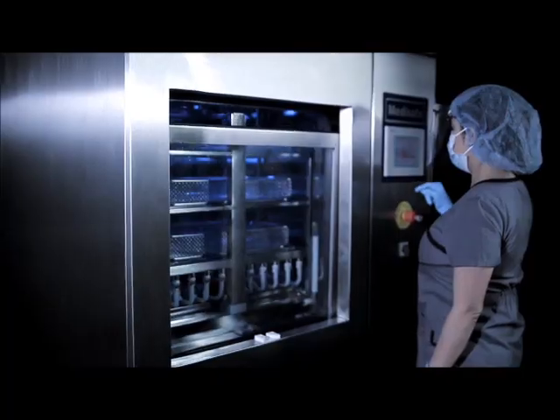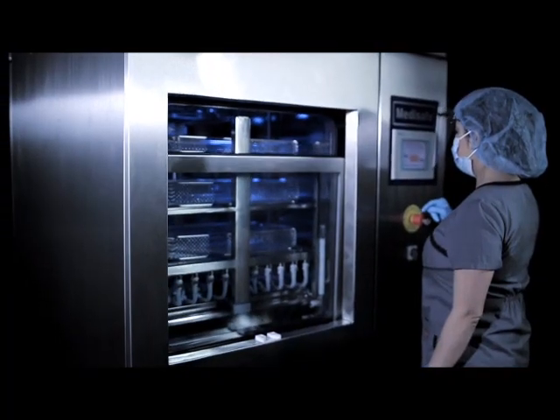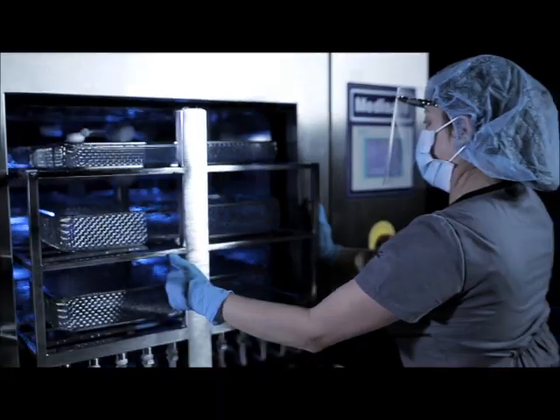Detachable spray arms are engineered to accommodate a variety of instrument tray sizes and allow for easy spray arm cleaning or periodic maintenance.